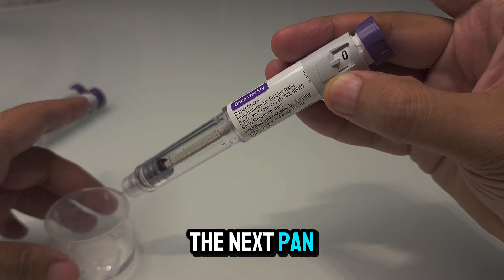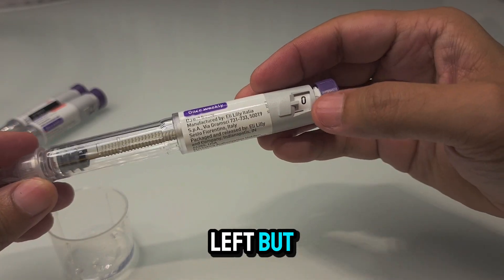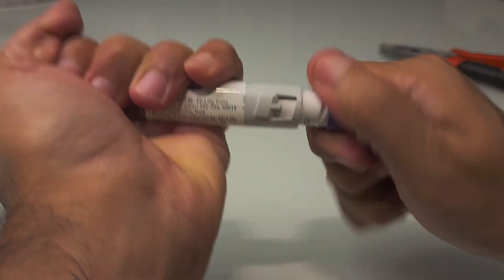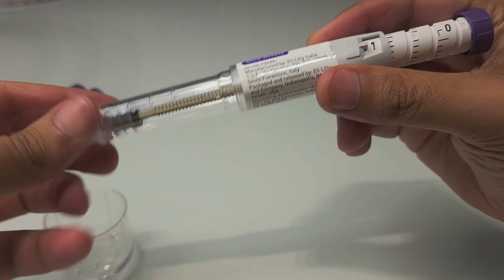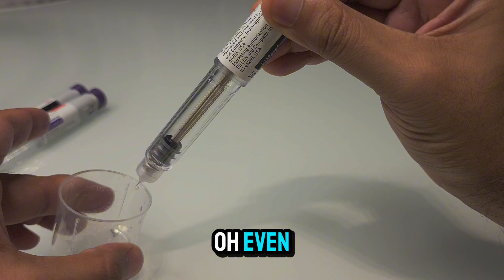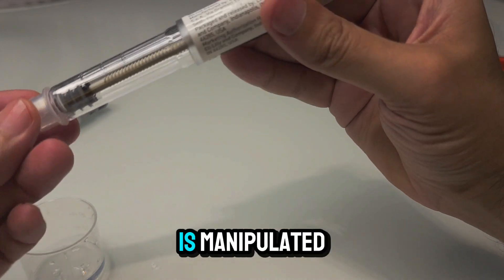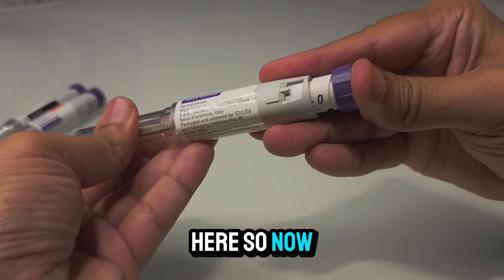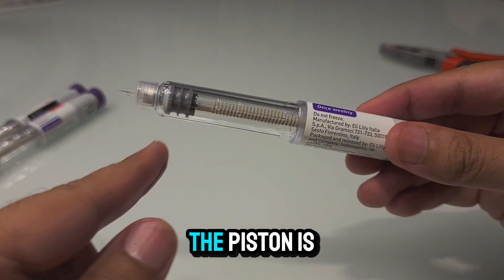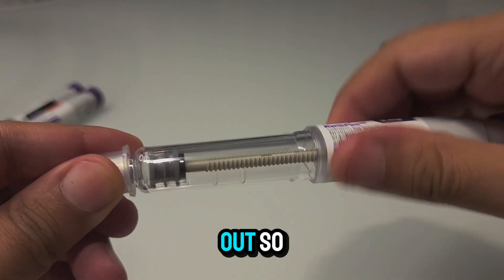Let's try it with the next pen device to see if this is consistent. There's still some fluid left but it is coming towards zero — something is better than nothing. The dial is going quite easily, and pressing it, even the last few drops come out. Technically the last fluid comes out if the dial is manipulated a little with some force. Now I cannot move it back to zero, which means the piston is stuck — that is the true residual fluid.